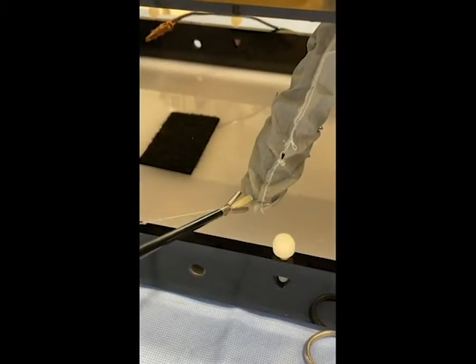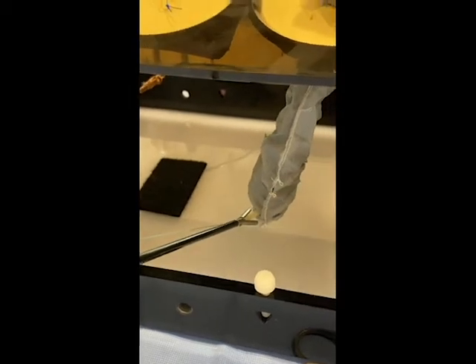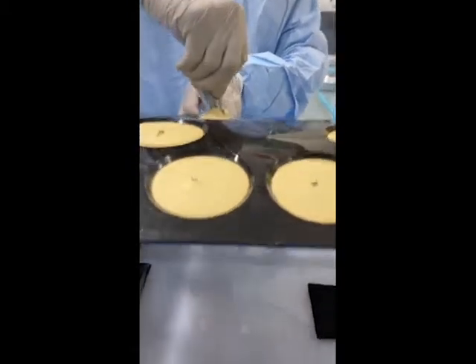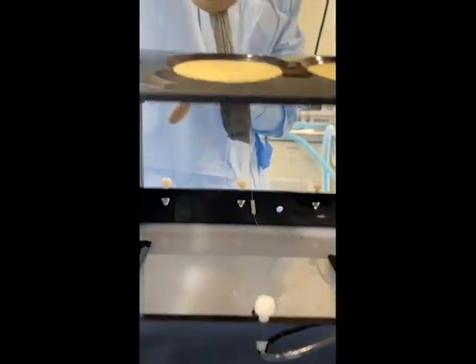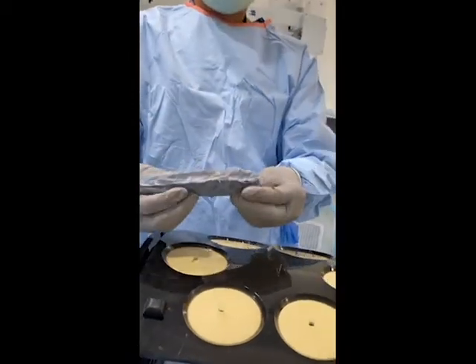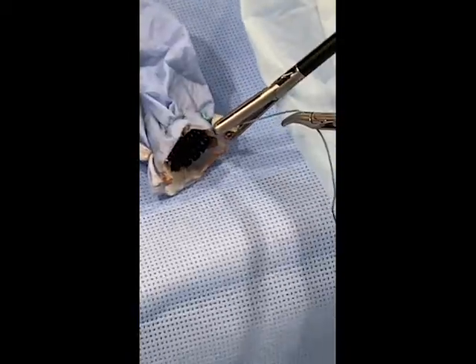And that's a close-up view of the cinching. The cinching does not actually hold the specimen. The specimen is pulled out through the compression of the mesh, not the cinch.